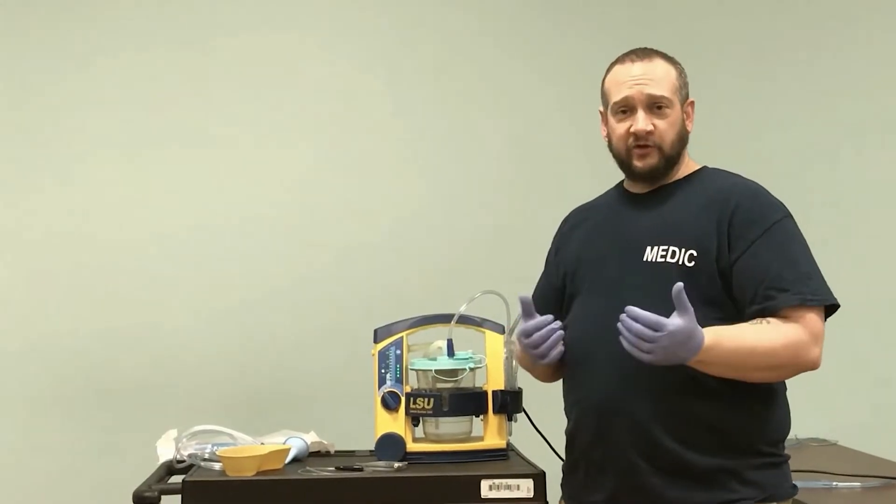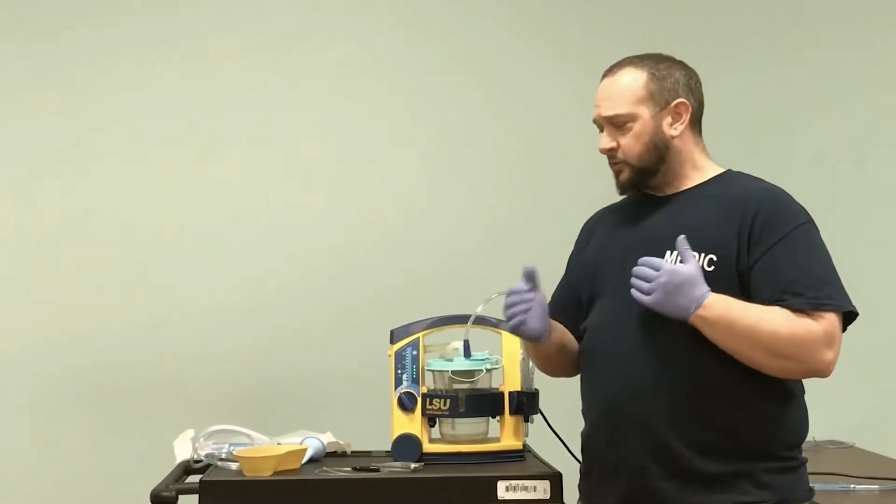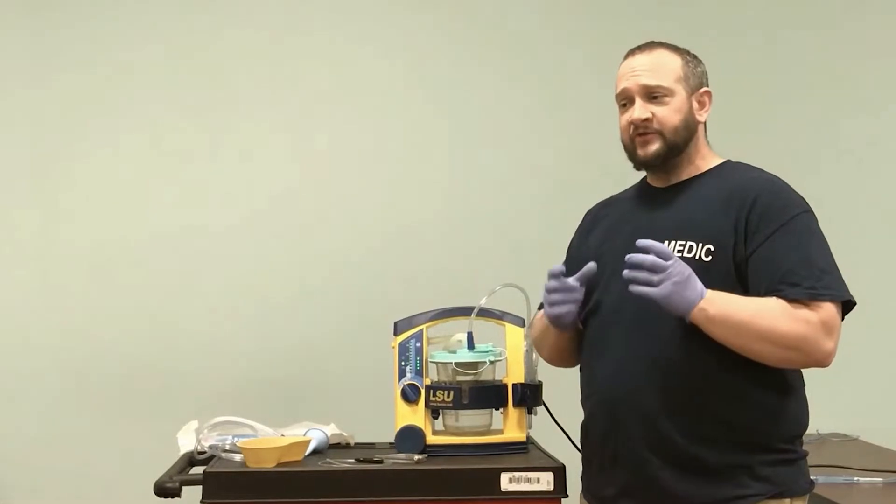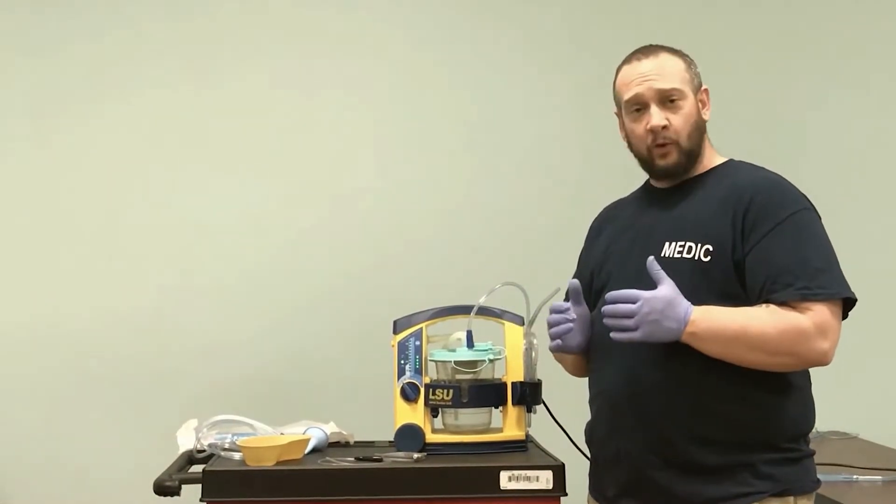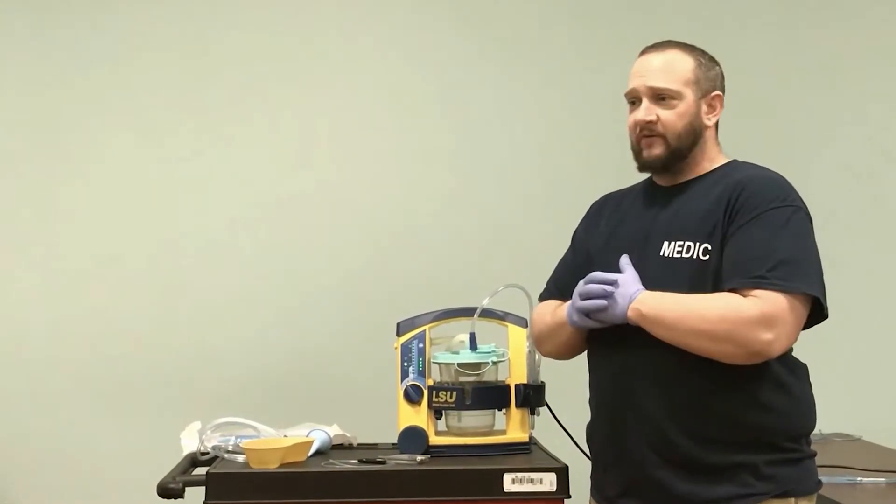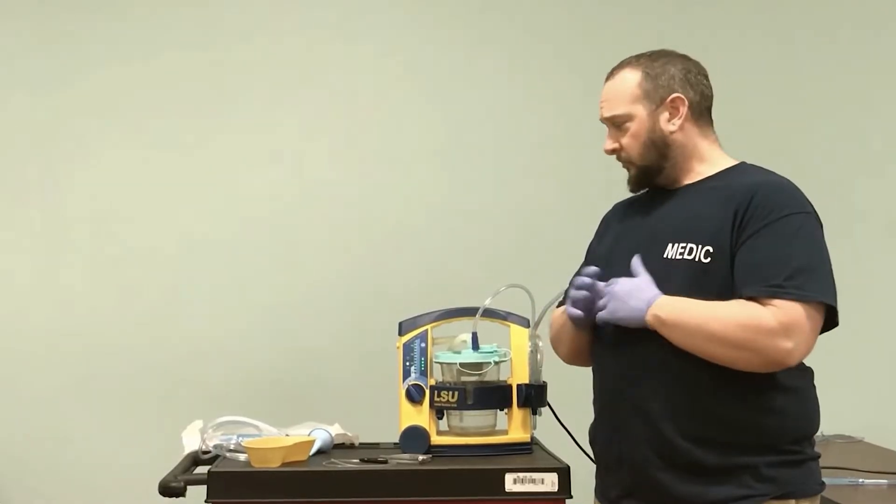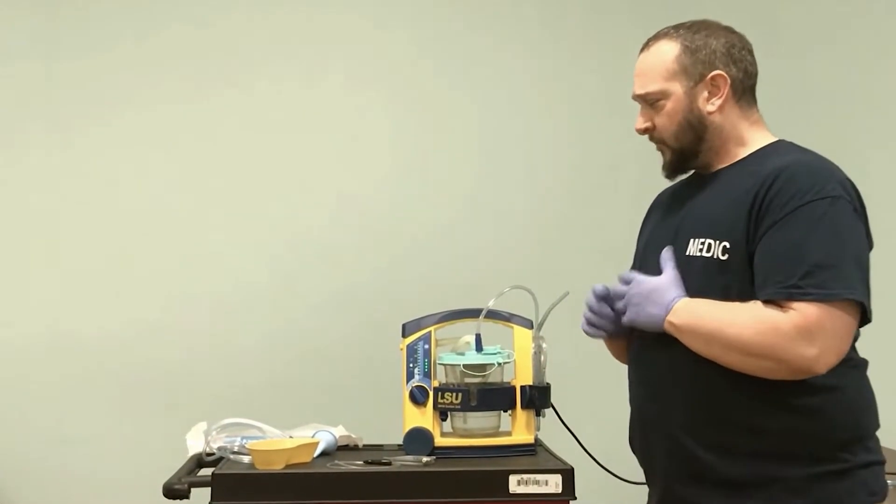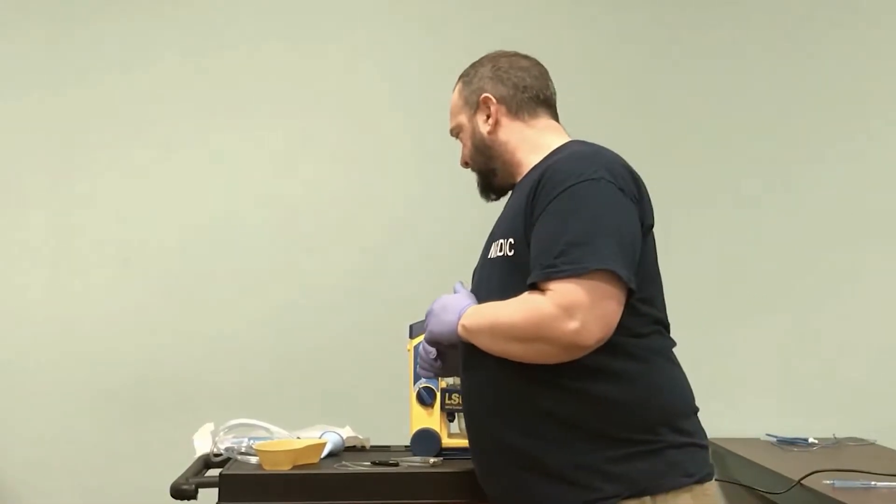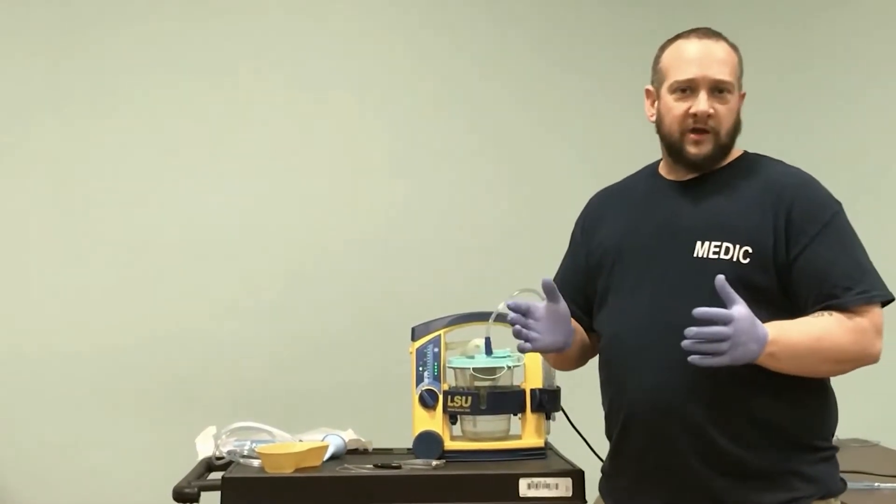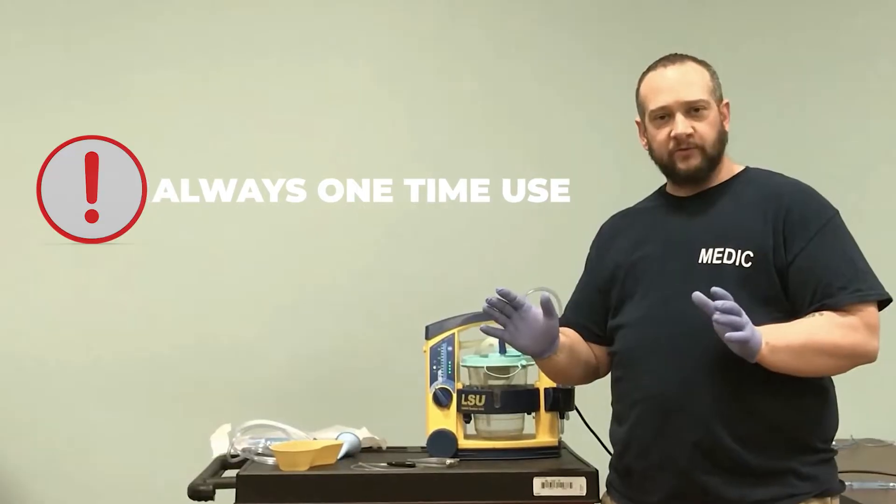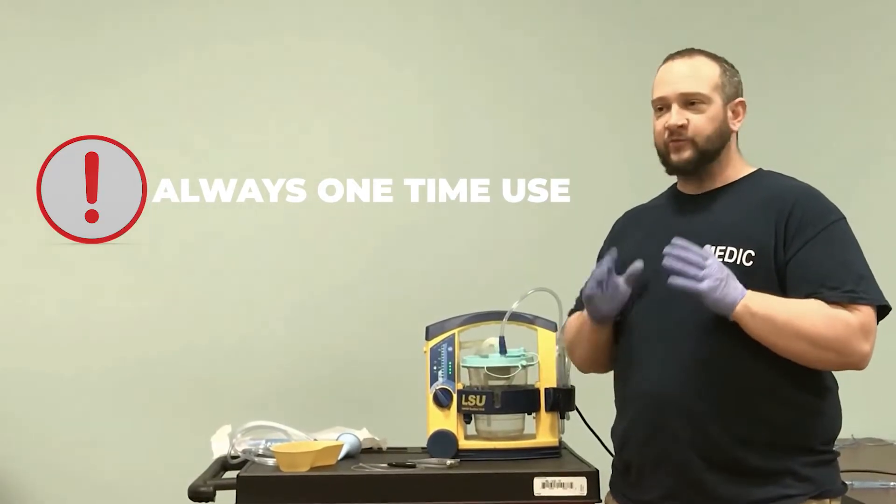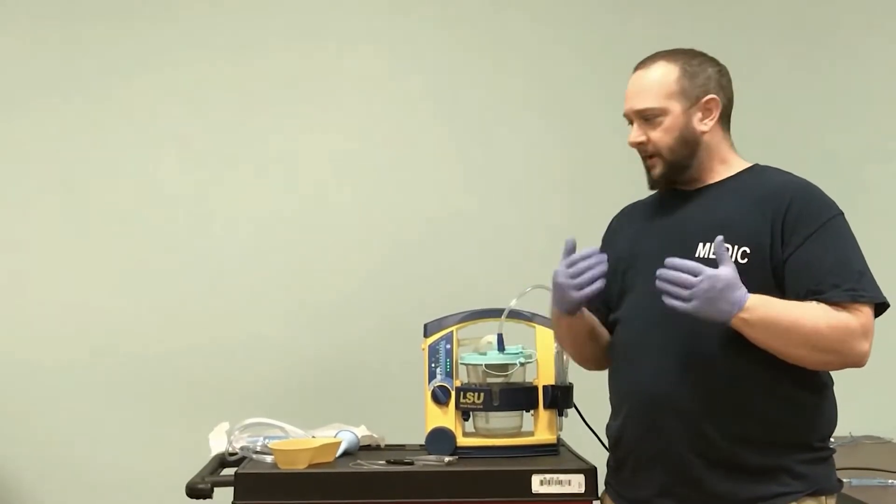When we need to start adding suctioning devices, we'll talk about these pieces and show you how to assemble them. This is equipment you'll be using in lab. Anytime we're doing airway stuff, it's always one-time use. Once we use it, it gets thrown away.